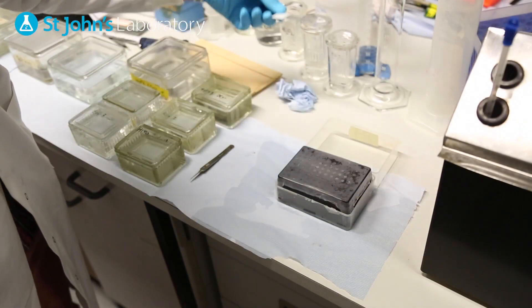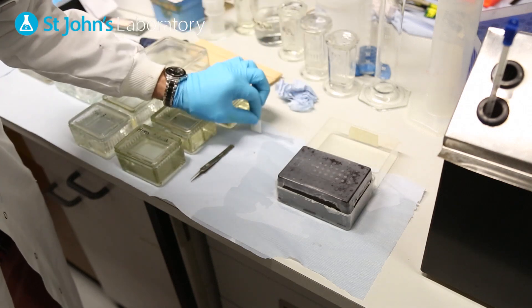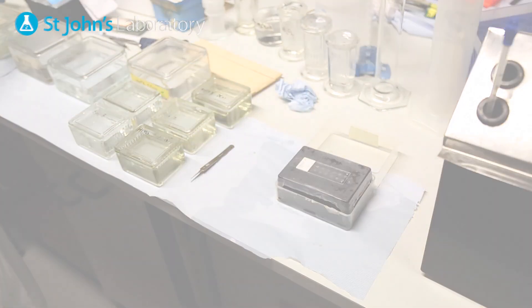Then carry out a PBS wash as described previously. Tapping the slides gently between washes will help remove any excess liquid.